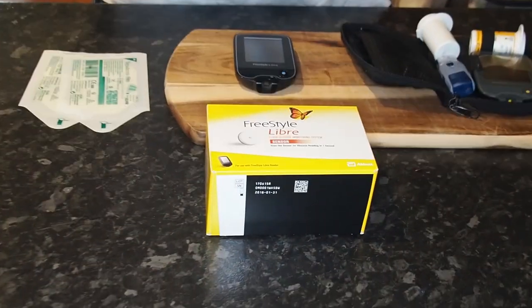We're about to go to Bali and I really want to try my new Freestyle Libre blood glucose monitor on the trip. I've tested it a couple of times now and what I've found is the sensor falls off from doing a lot of activity — from the moisture from running, abrasion, rubbing against clothes, and getting knocked around.